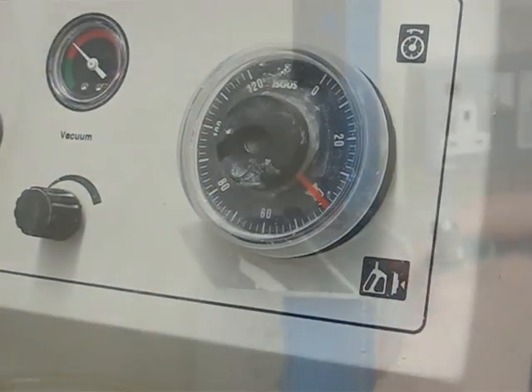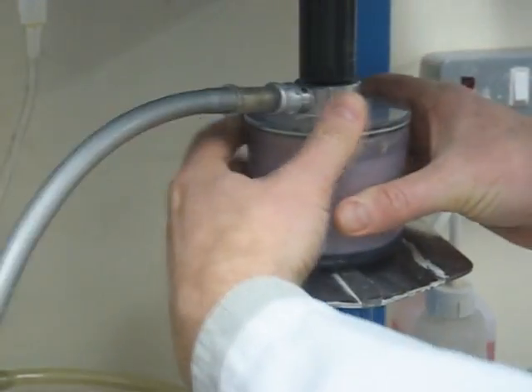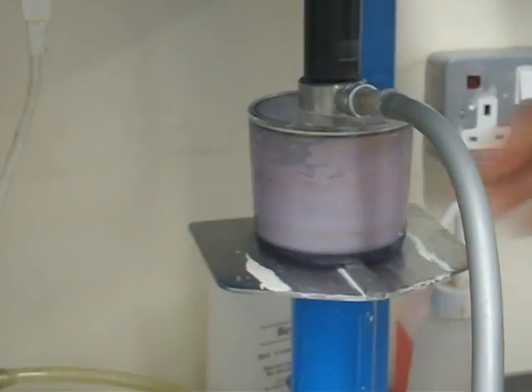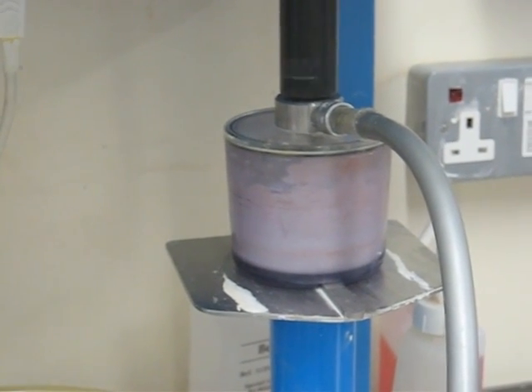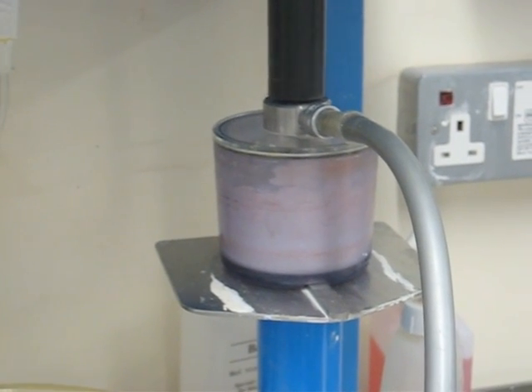Alright, 30 second mix then. This is all written on the back of the packet so you just follow instructions. As I say we tend to check it before we start. It's all there. The packets are all pre-weighed and everything so everything is a little bit simpler than making a die model.